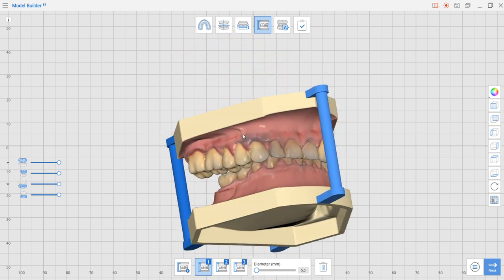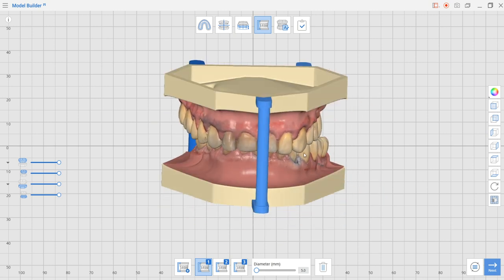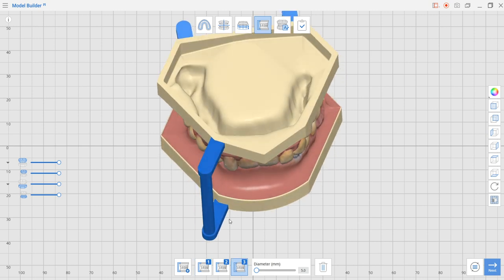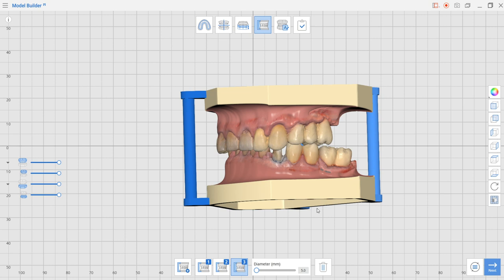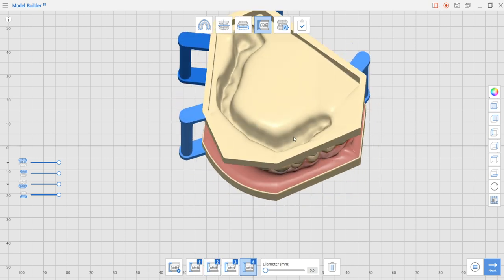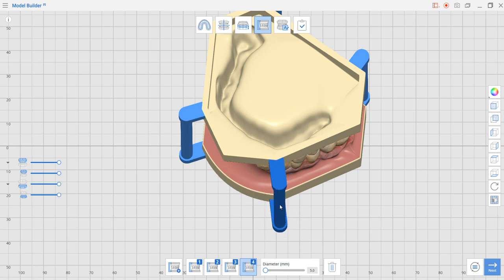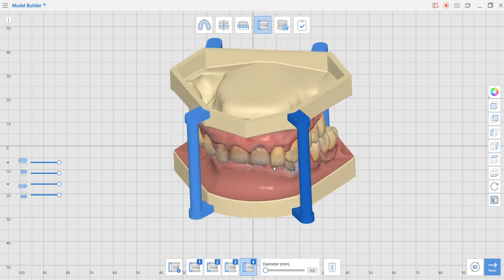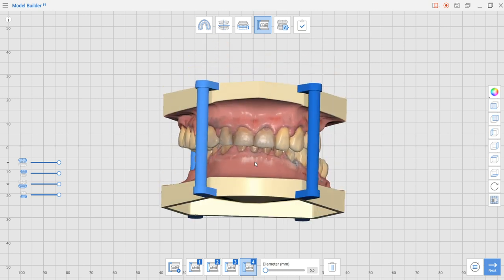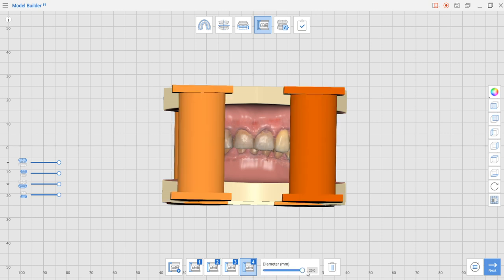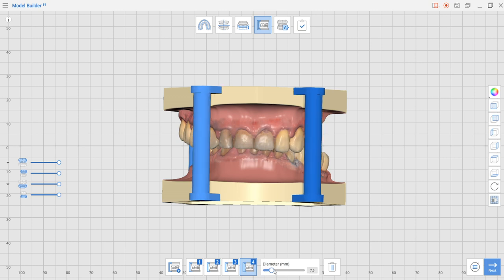I generally like using four attachments, not three. So I'm going to drag this attachment to the left and find it a better position, and now I'm going to add a new attachment. It came out in the wrong position but I'm going to drag it where it needs to be. Now that I have four attachments, I just have to mention that from this slider here you can generate them to be thicker and you can go with this thickness to 20 millimeters. Increments are 0.1.